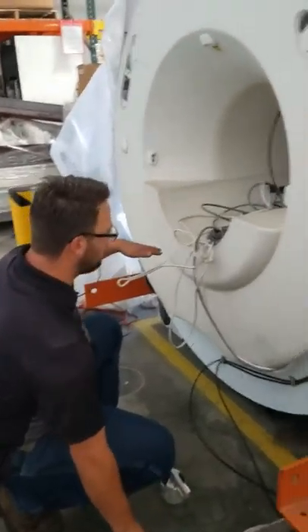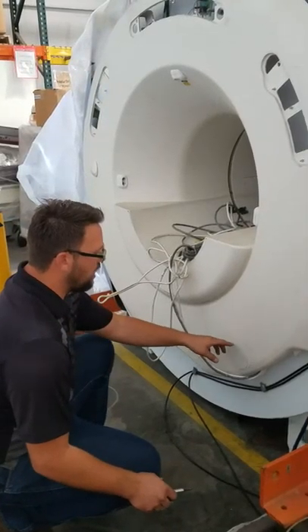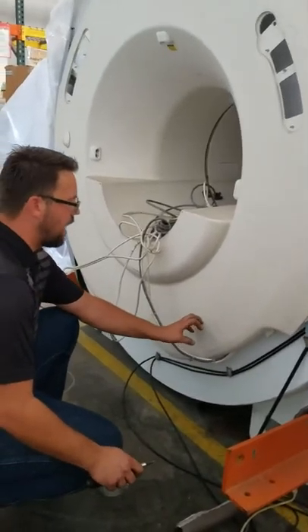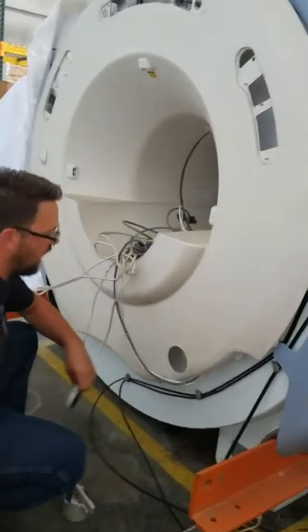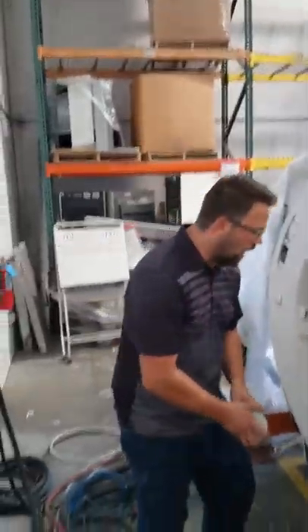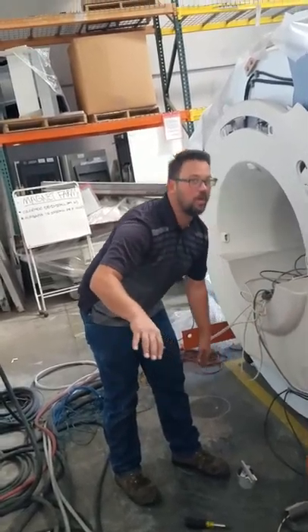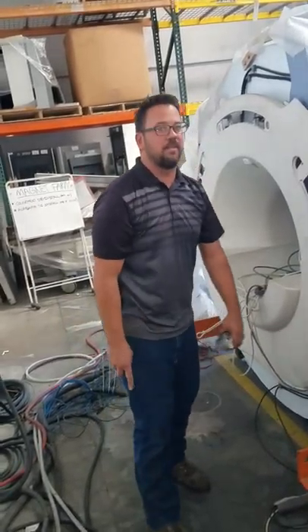This is the front of the LCC. You're going to have your vacuum port on the right side of the table and it's basically got a little cap. You would need a flat head to access it. Behind that cap is your port on the LCC, and that's also the last line of defense for emergency evacuation of the magnetic field.